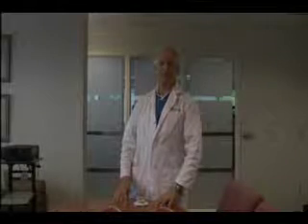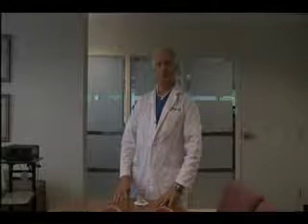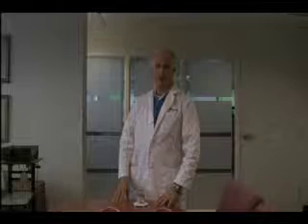Hi, I'm Dr. Steve Siebser. I wanted to show you a few products that Goulden Ophthalmics has developed to make your life easier.